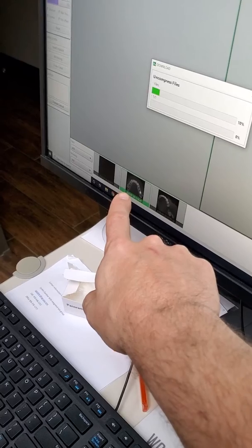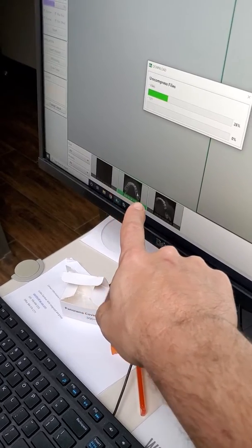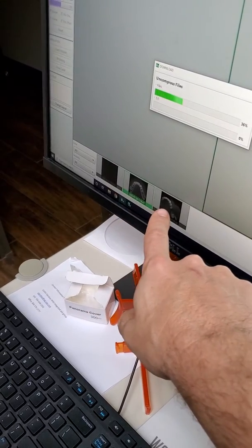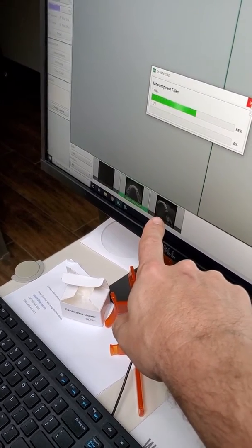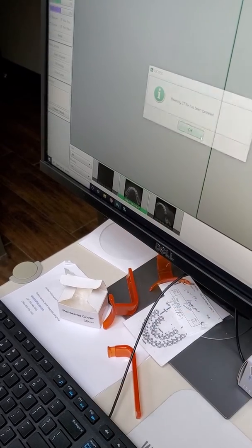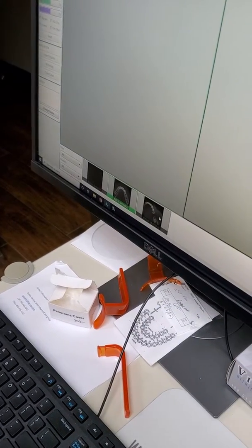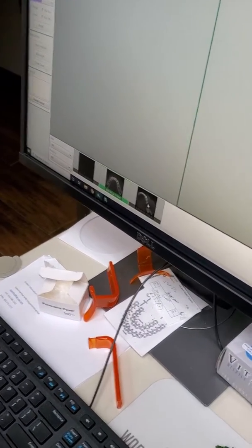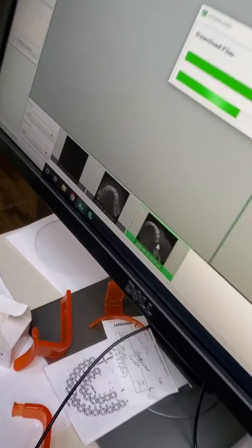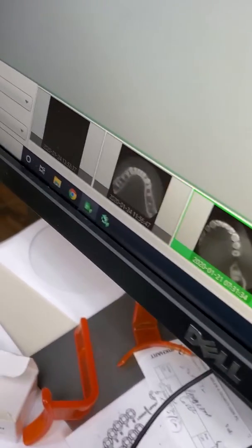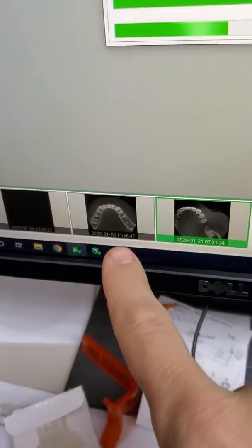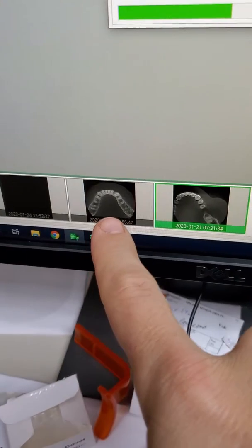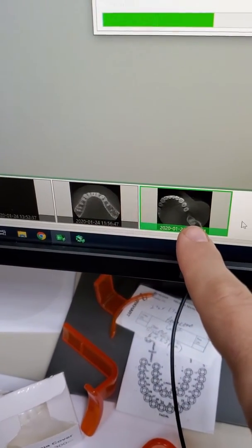Now this one has the implant, so it might not be accurate, so we may have to open up this one, which is probably the one when the model was taken. So we're going to open that one instead. You can see that's only a partial scan. It's better to have this larger scan so it matches the model size instead of this one.